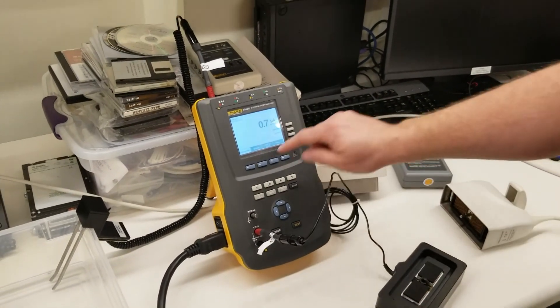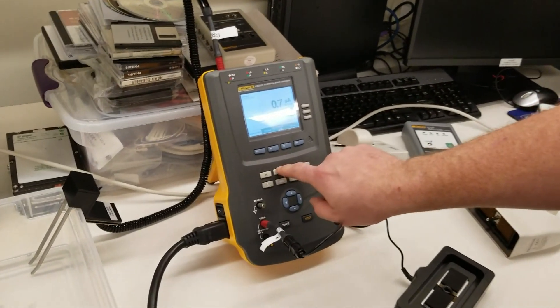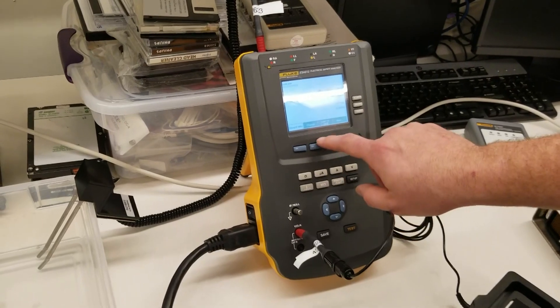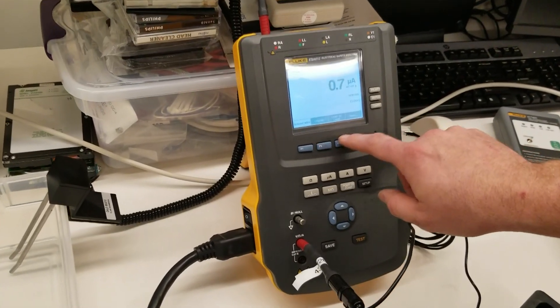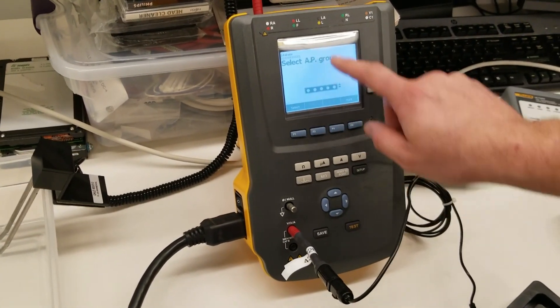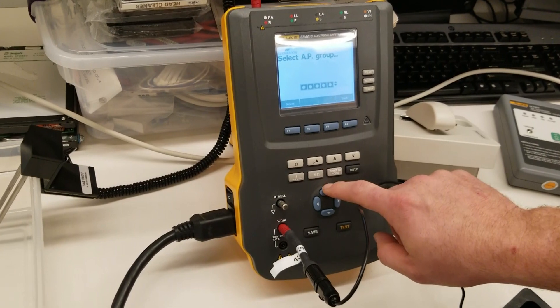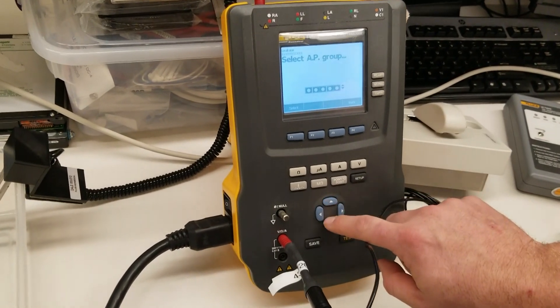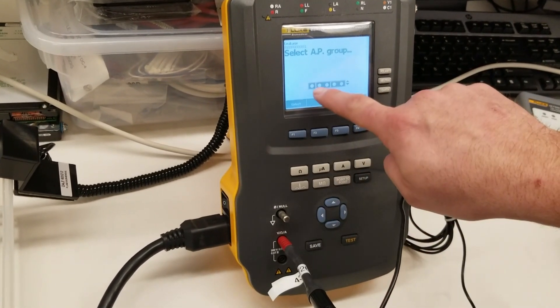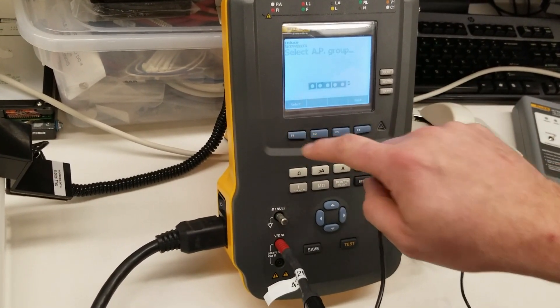Now we're going to press UA and we're going to go to more and we're going to select our group and I want the leftmost port. So you can see it's now highlighted and we're going to select that.